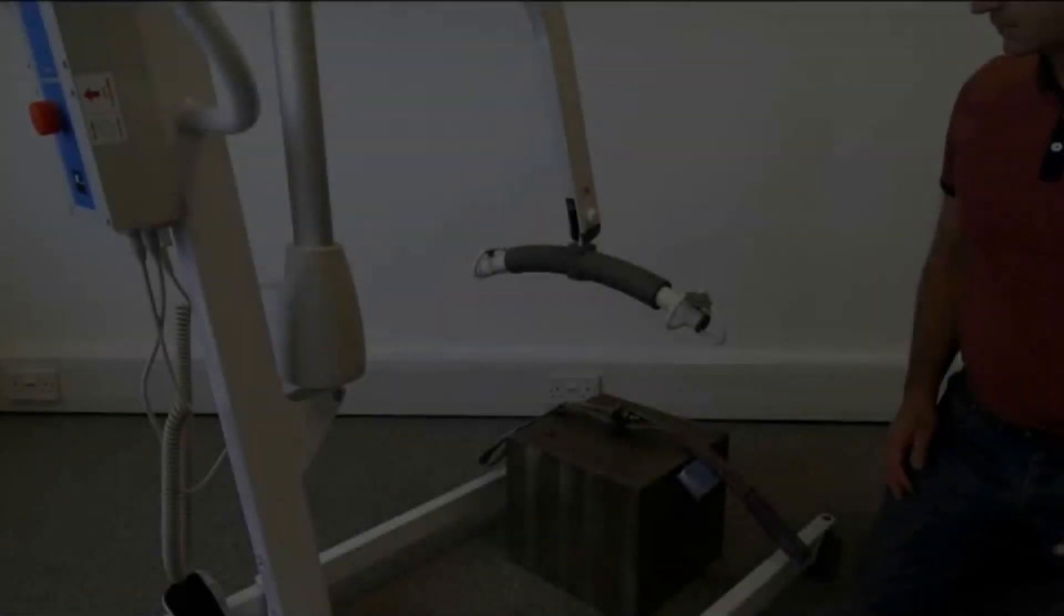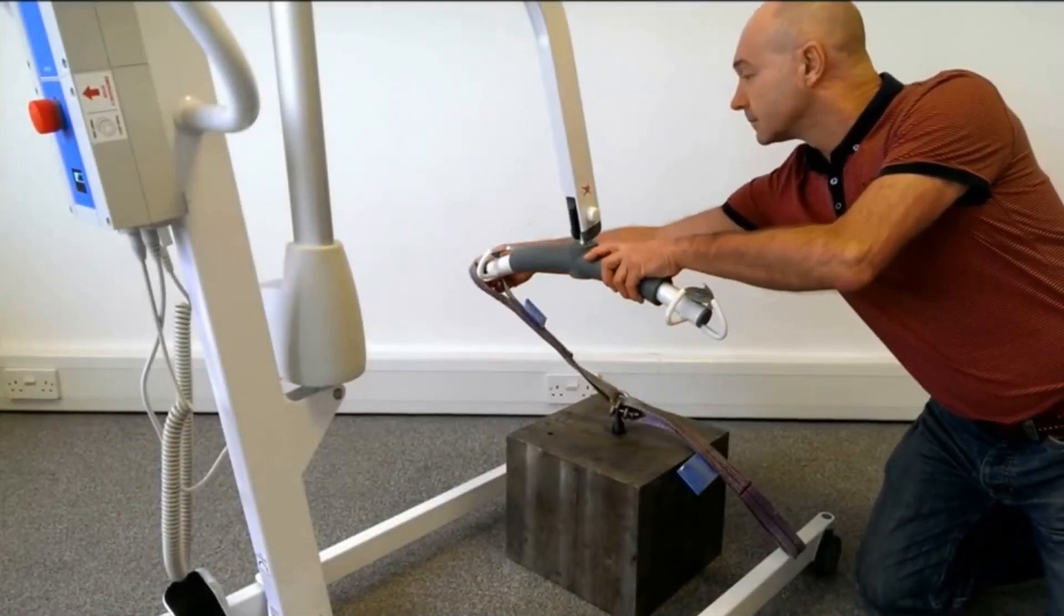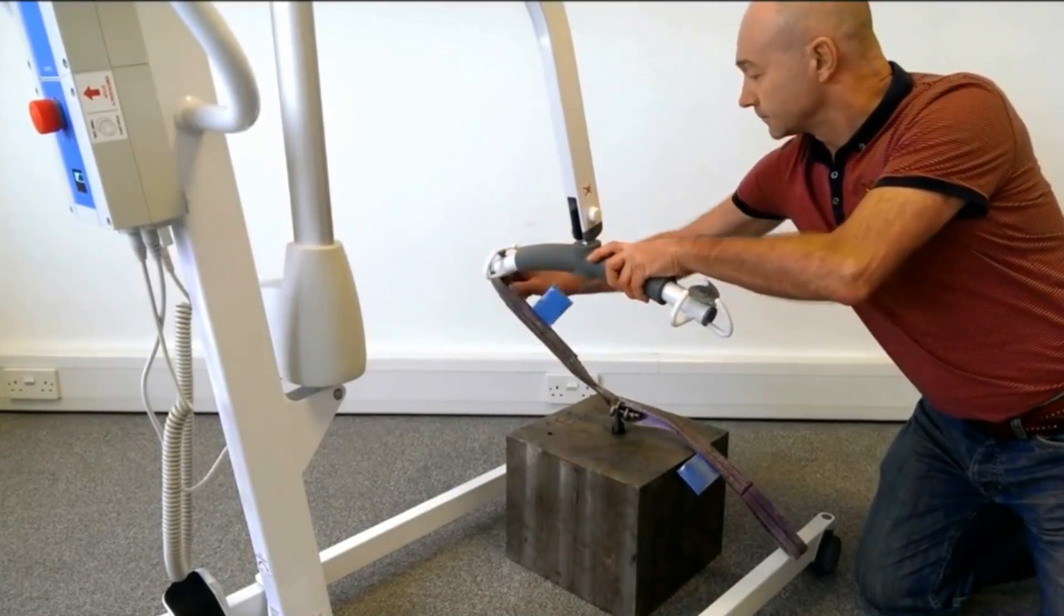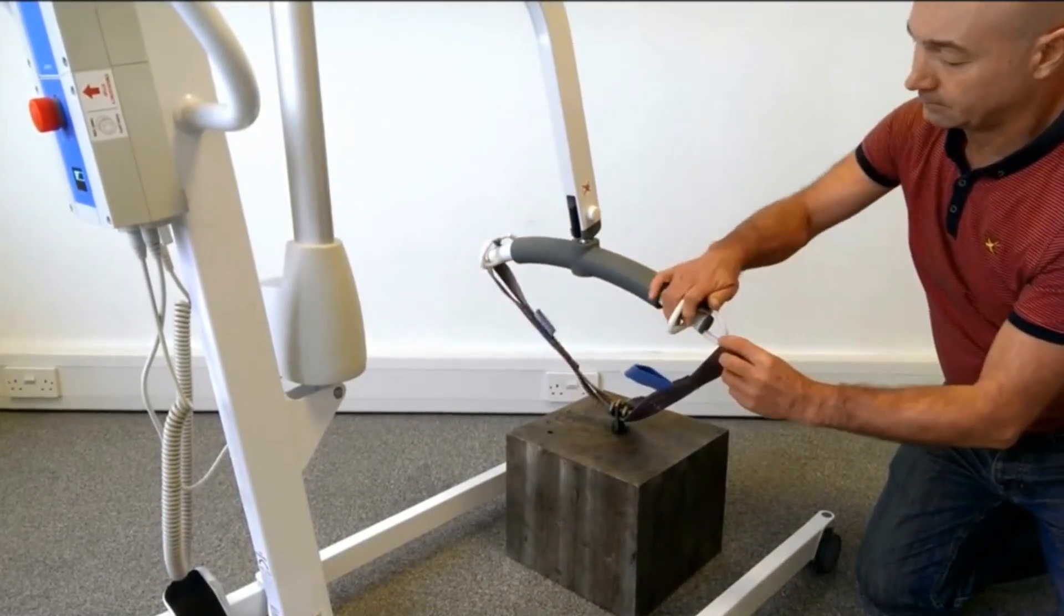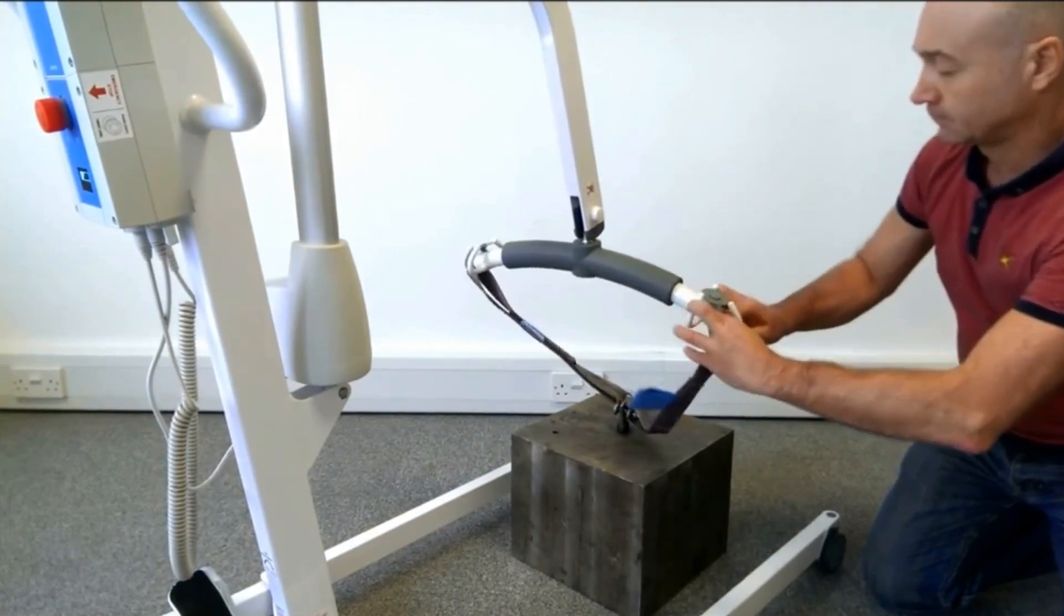If you are unsure or require clarification, contact Jones Healthcare for guidance. Failure to calibrate using the correct load may result in your lift being unsafe for use.